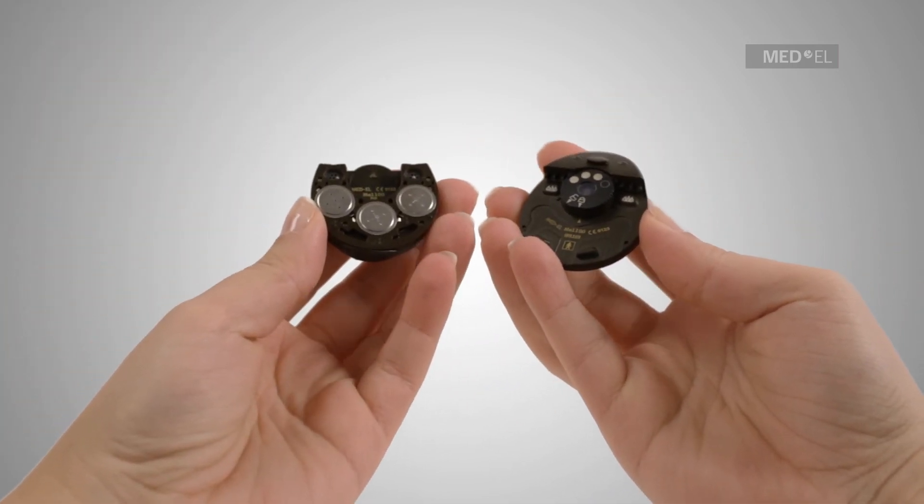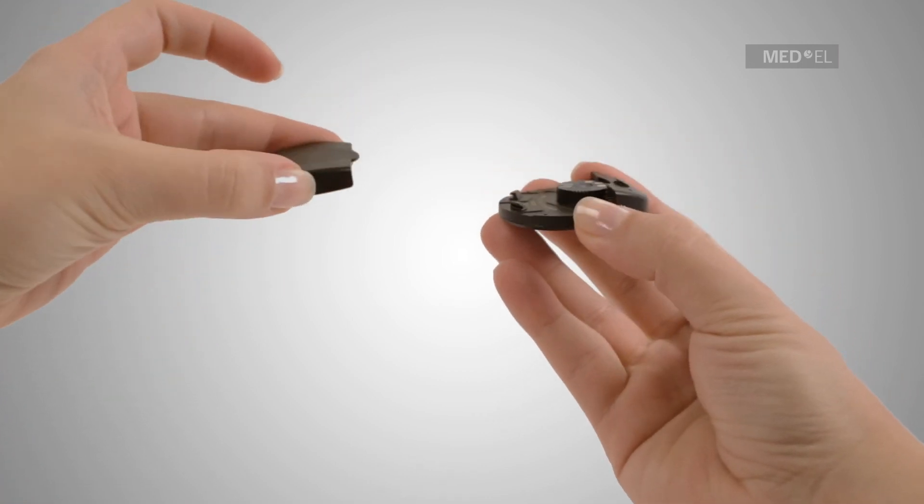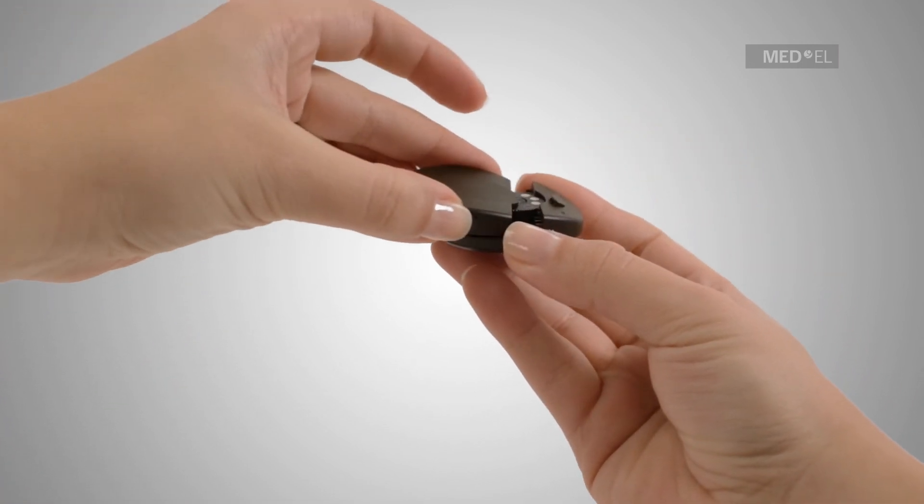To reattach the battery pack once the magnet has been changed, use the gently landing airplane method.